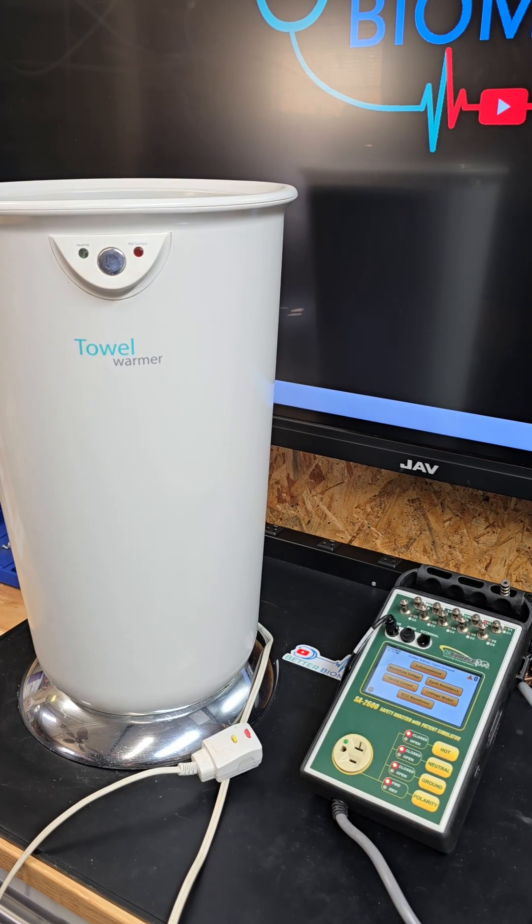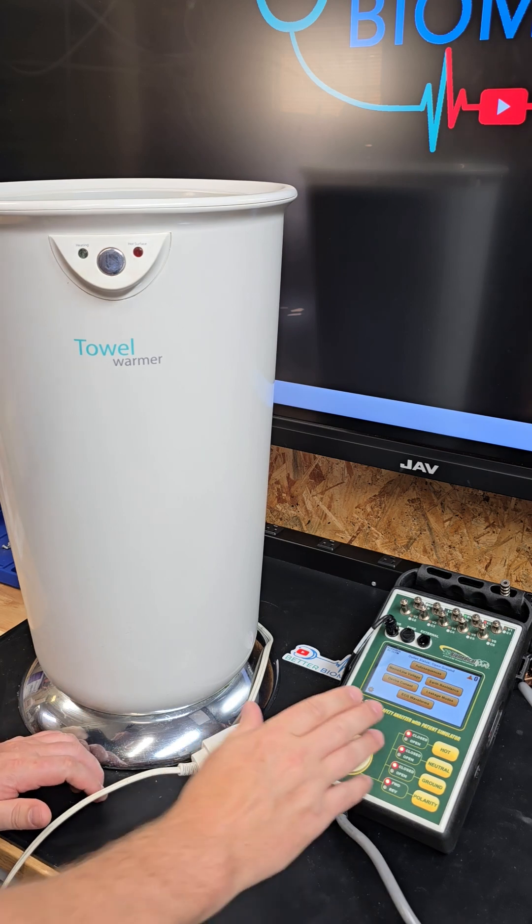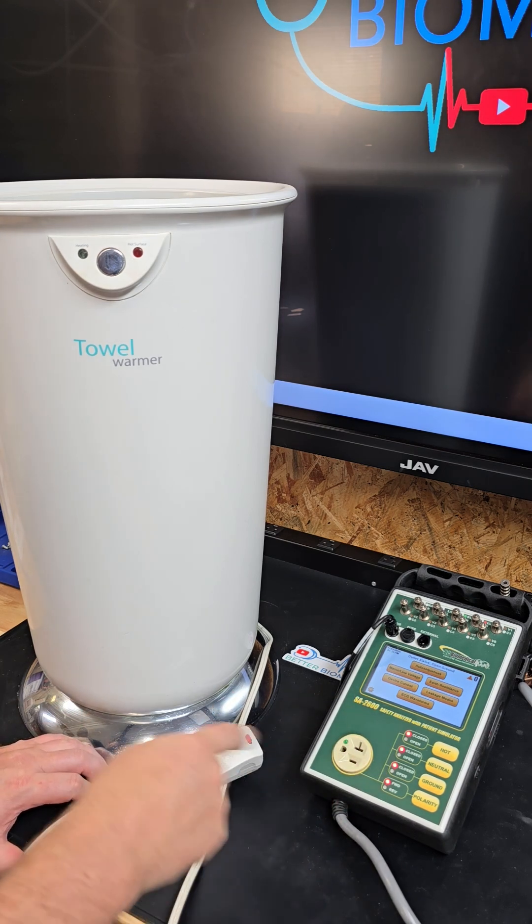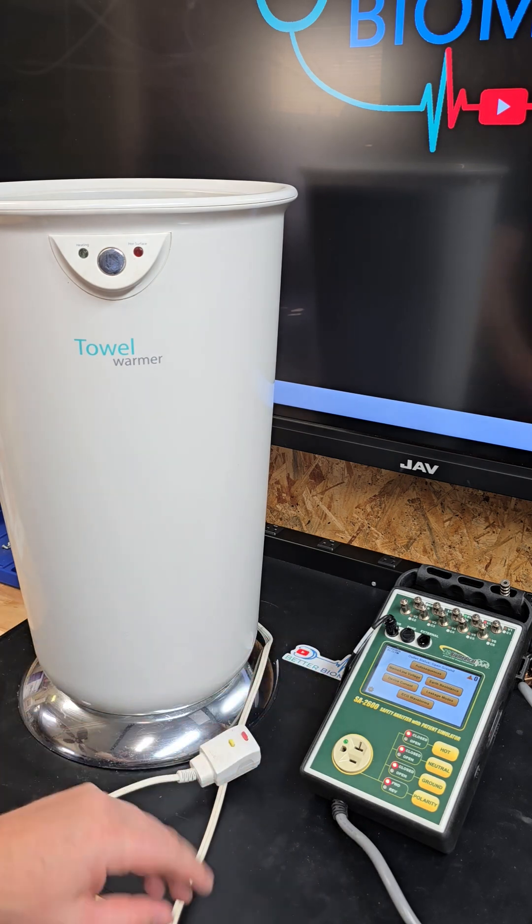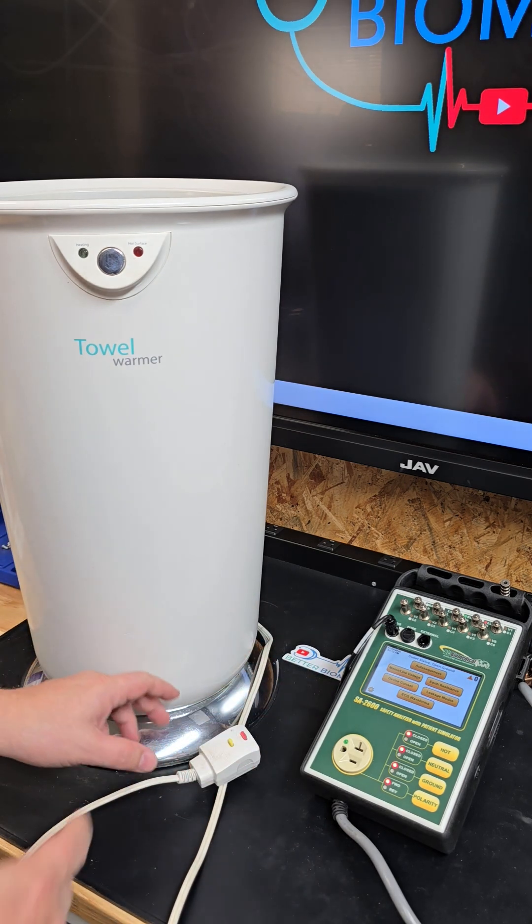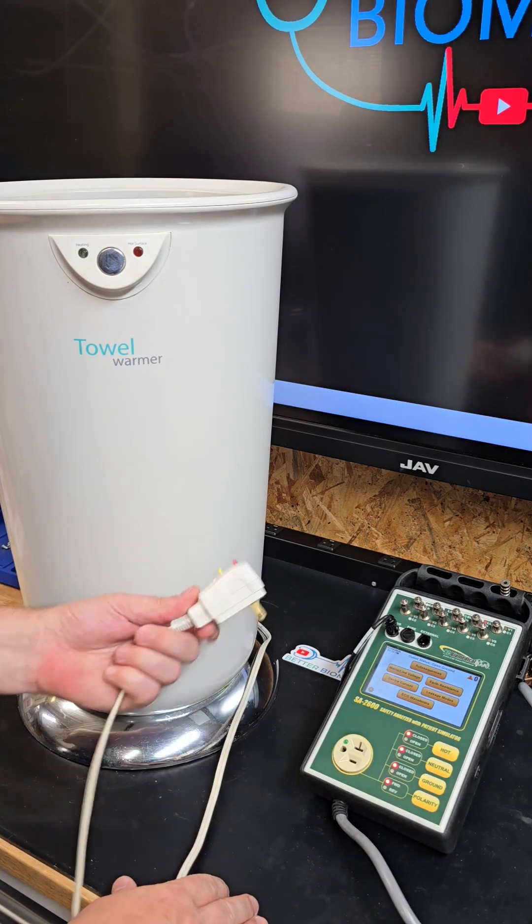What's up everyone, welcome back to Better Biomed. Today I'm going to show you how to use your electrical safety meter for troubleshooting. I have the SA2600, a touchscreen electrical safety meter that makes this very easy.